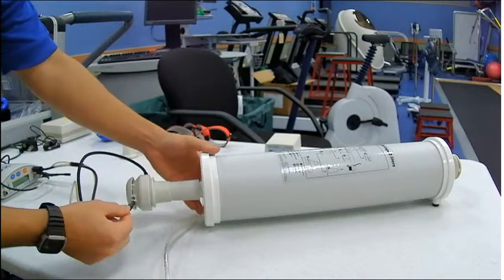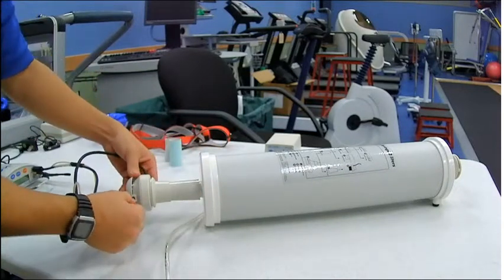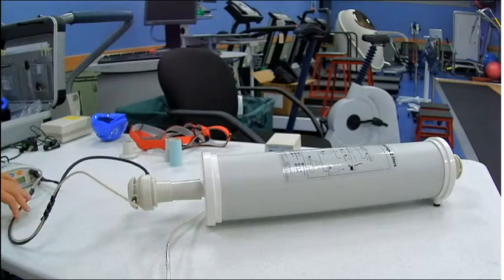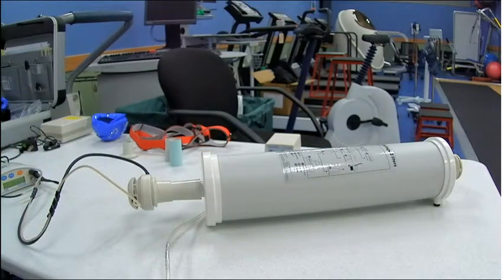This sampling line, it fits right into that little hole right there. And you'll push it in. I just want to show you because you'll be taking it out for the next step. And that's how you set all your equipment up.